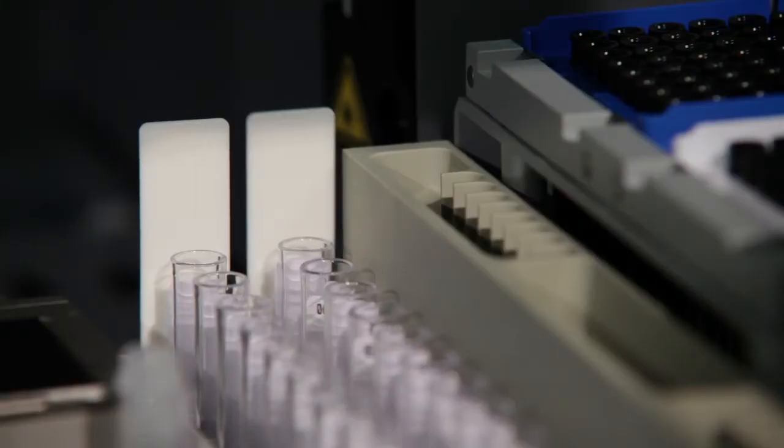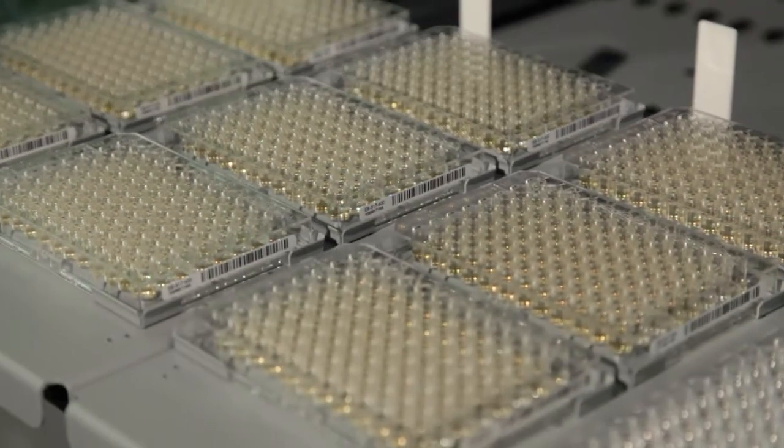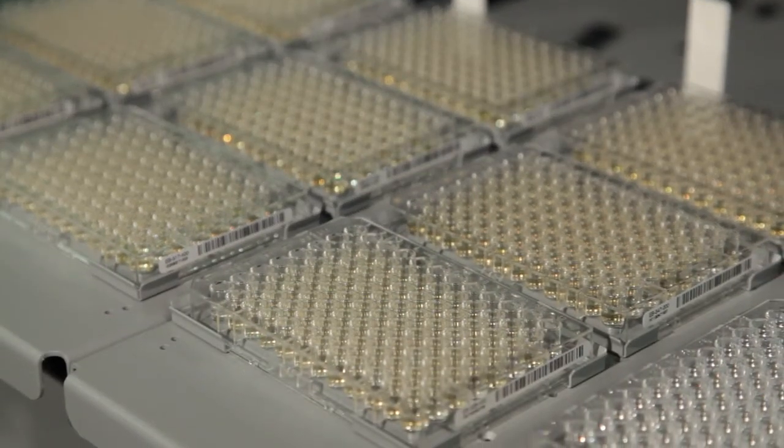Based on the well-composed barcode system, the Micronaut plates and the sample tubes are identified and attributed. In a first step, the Micronaut software generates working lists.